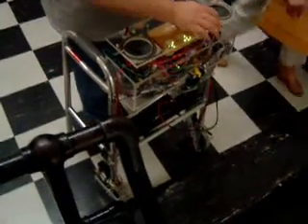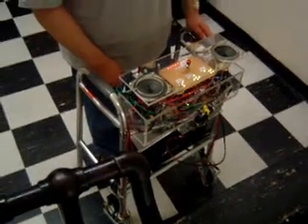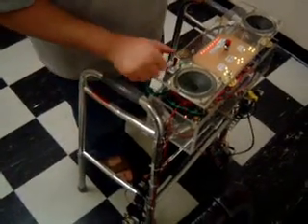At any point in operation, I hit the emergency button and the alarm goes off. All operations halt, nothing else happens, and the brakes are locked.